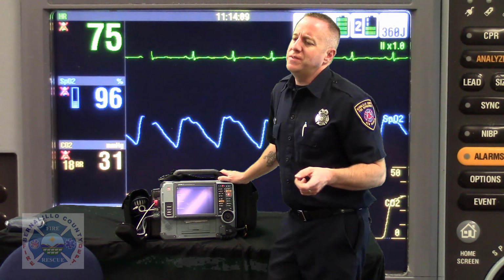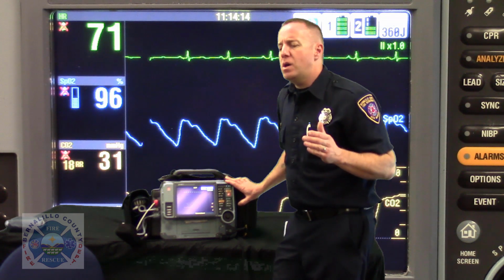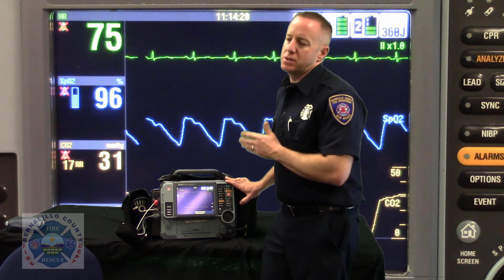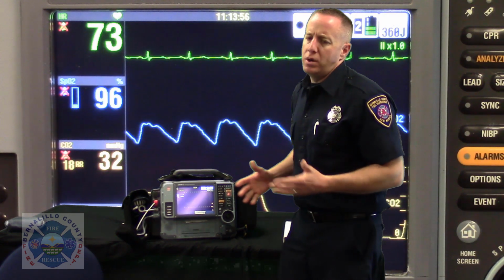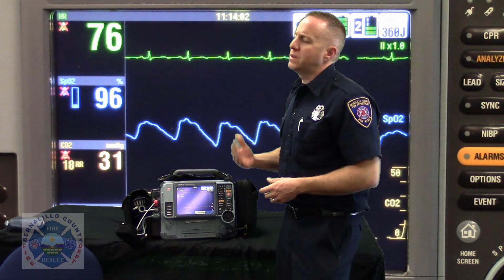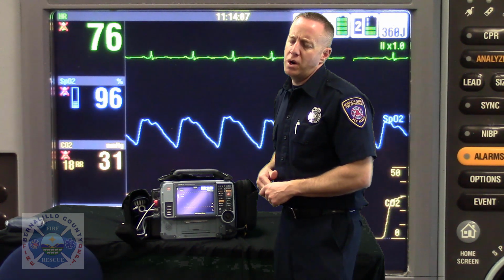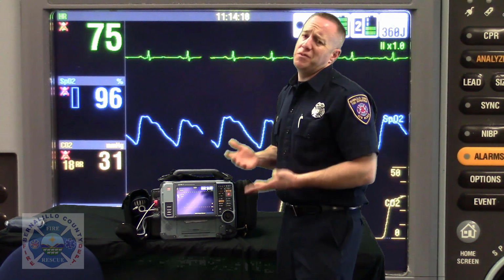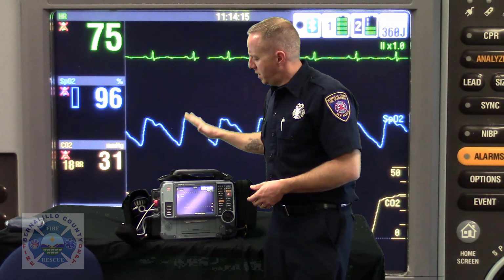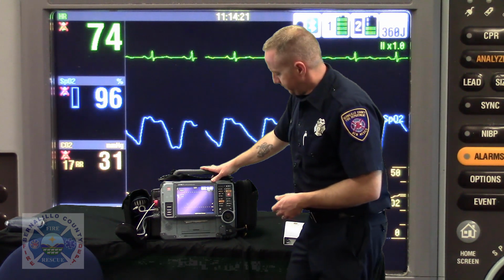Later, when we talk about retrieving data, this timestamp right here will give us a great indication of how long it took you from the moment you arrived on scene in your rescue to the moment that you actually made physical patient contact. And why that would be important, I don't have to spell that out for anybody. If there was a delay, we're walking to the 3rd floor of the casino, the patient's inaccessible because they're behind a locked or closed door, we may not always remember to look at our watch when we finally make patient access. But if you just power on the monitor as soon as you set it next to your patient, you know exactly what time your patient assessment started. So that's a really good practice.